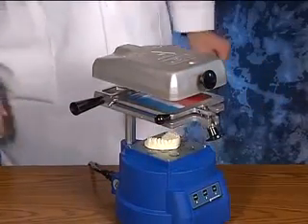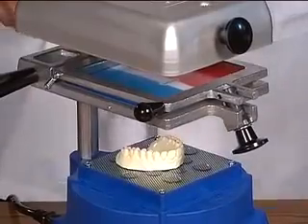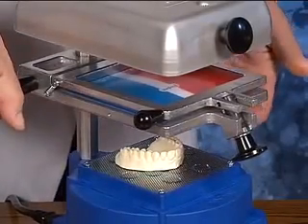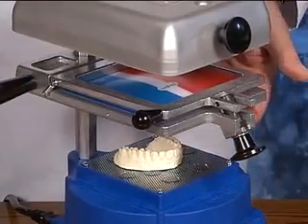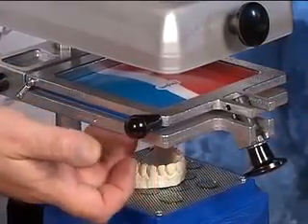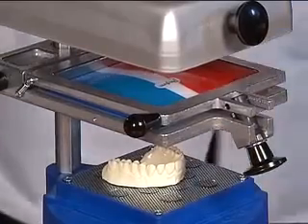Generally it's about a minute and a half or so. There are two ways to check whether the material is ready. One is visual — we're looking for about a half-inch droop from the bottom of the frame. The second is what I call a tactile feel: I reach under and feel around the edge of the frame. The center of the material gets warm rather quickly, but around the periphery of the frame it tends to be stiffer, so we're looking for a nice pliability around the edge.